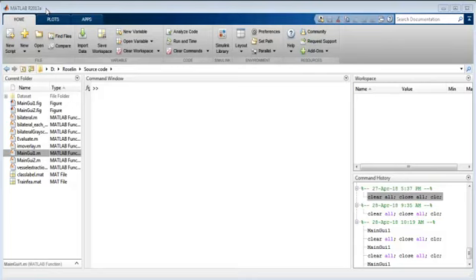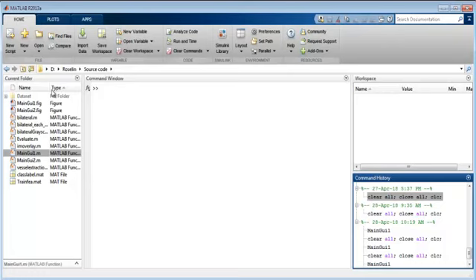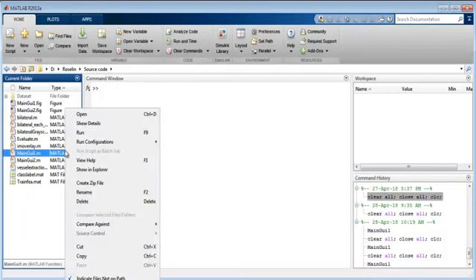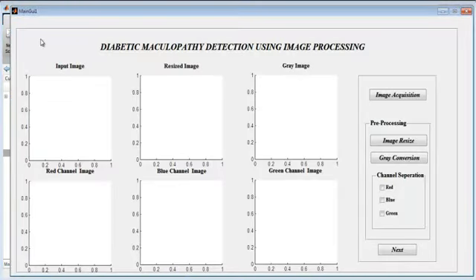When you open MATLAB, you will find this page. Then you can copy the location where you have placed your source code and paste it in the path bar. You will find the dataset and other coding parts there. Now right-click on 'main_gui_1' and select the run option. The main GUI 1 window will open.